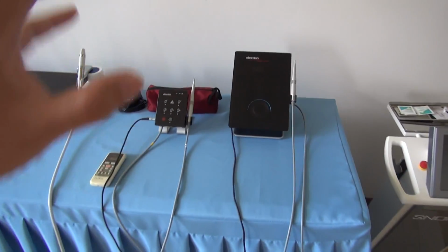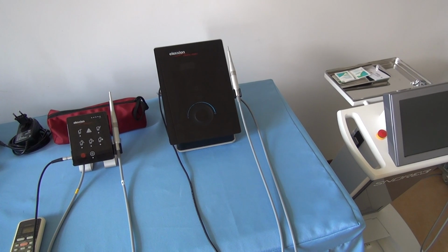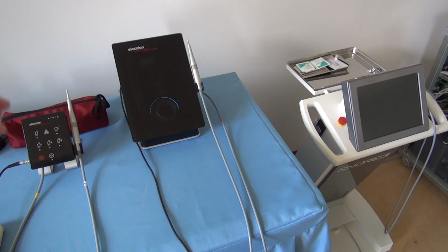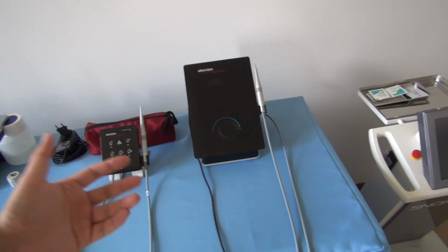So in this video, I am going to explain two ideas of mine. The first one, I will give a very brief, very small presentation of the small diode laser equipment. It is a kind of useful equipment.